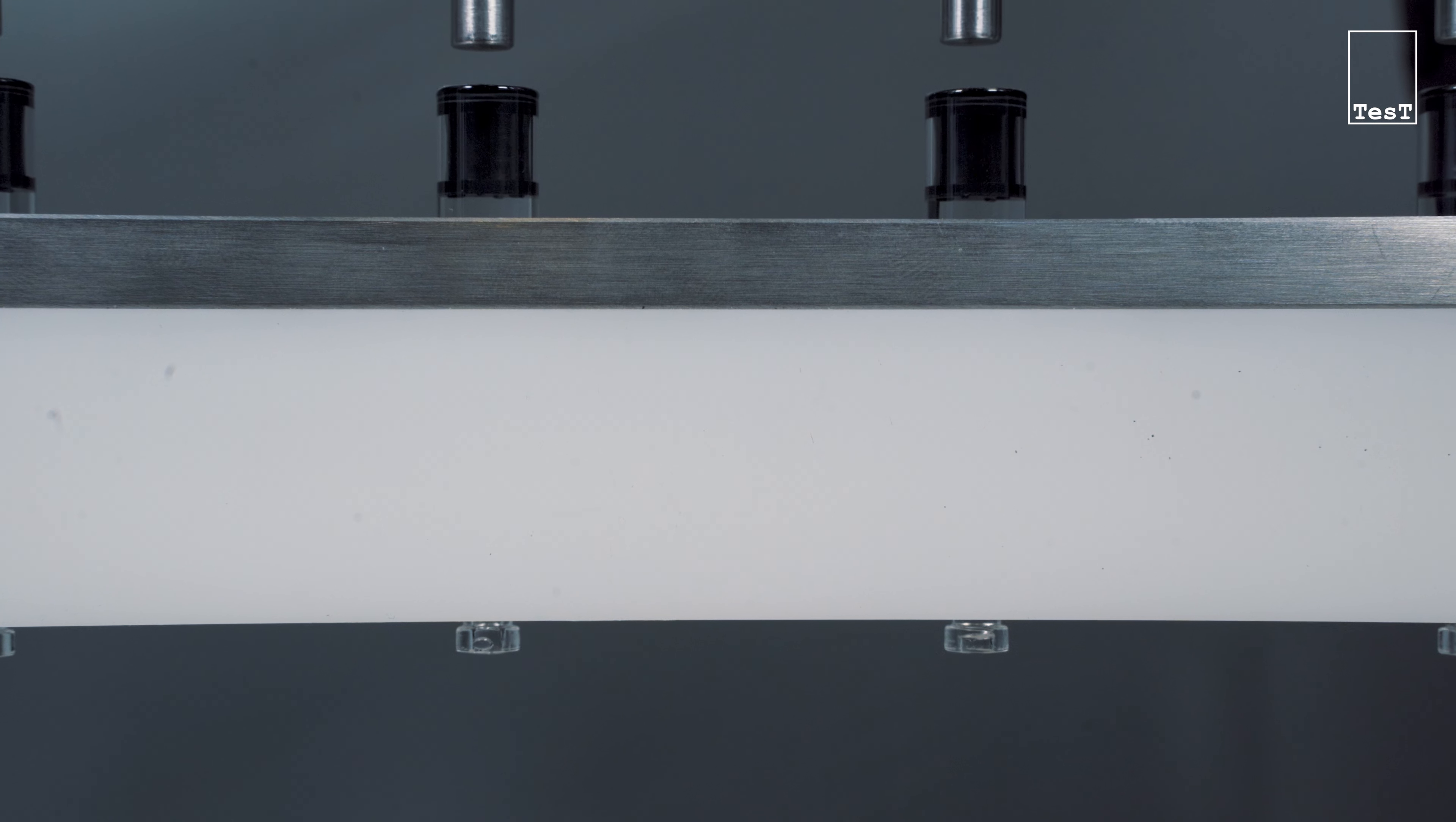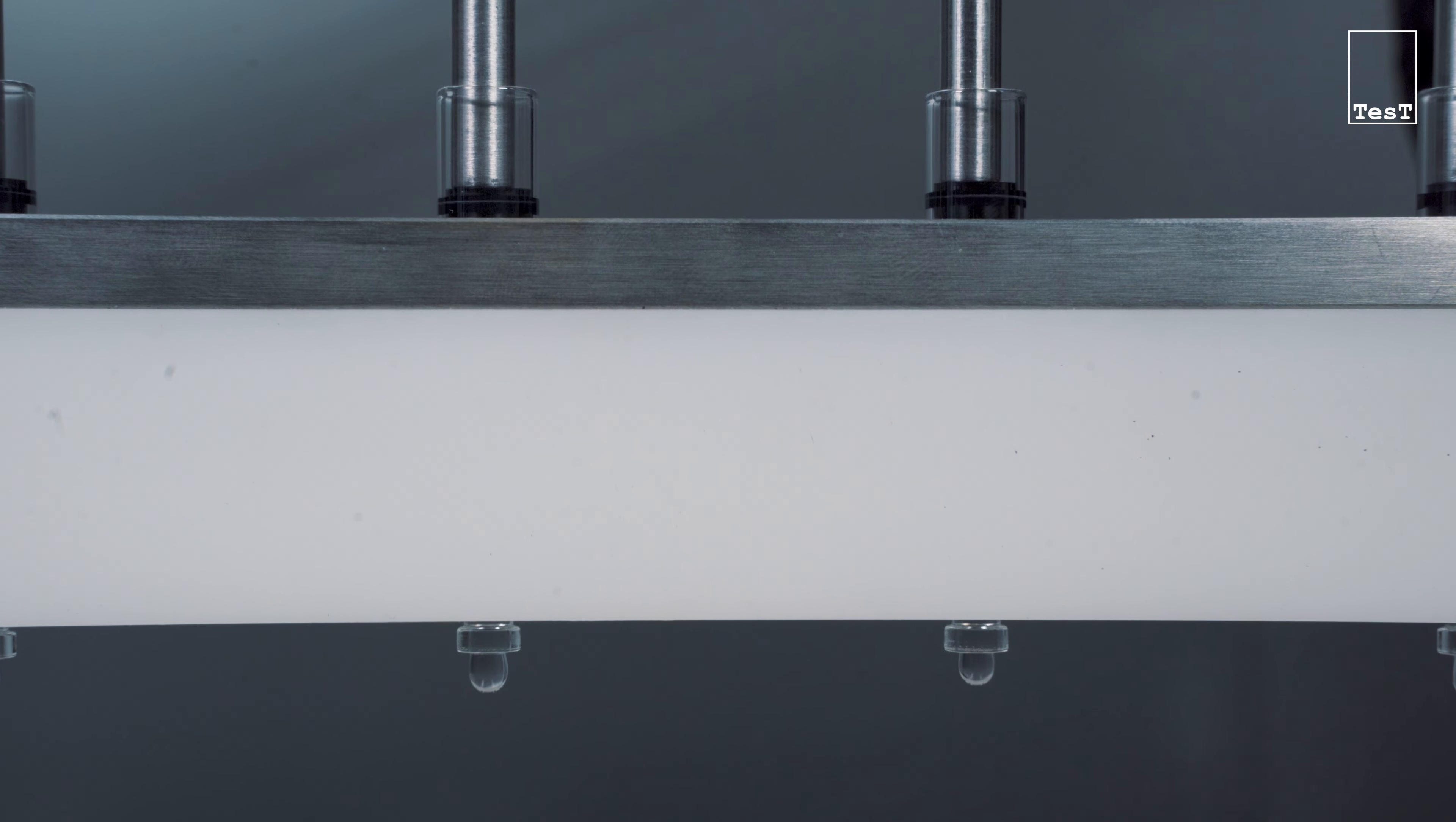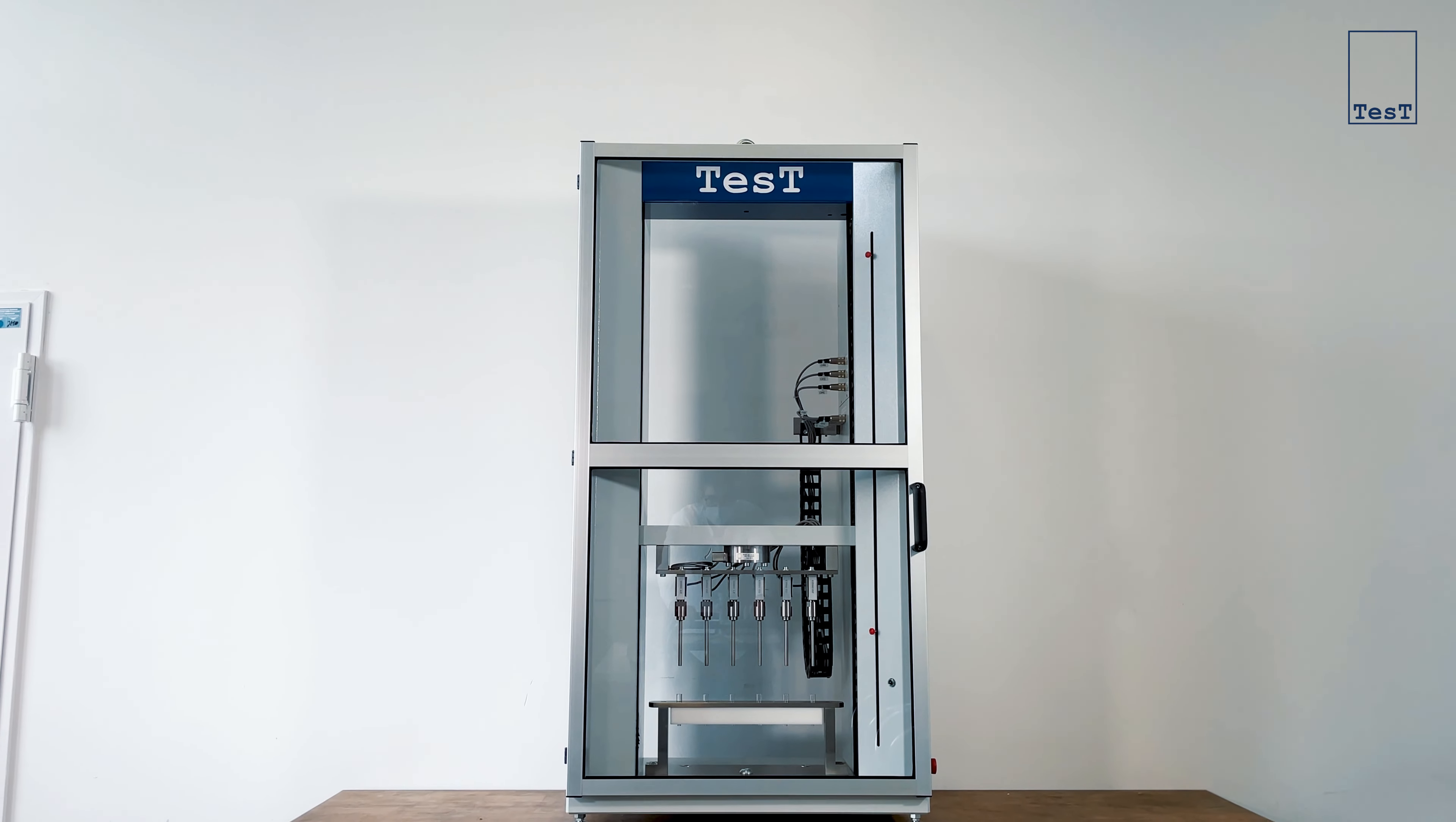The mid-sized cartridge testing machine 112 is suitable for mid-range production or packaging lines, where up to six test stations are required. It rounds off TEST's product range between single specimen testing and automated mass testing solutions. TEST for innovative research and reliable quality assurance.